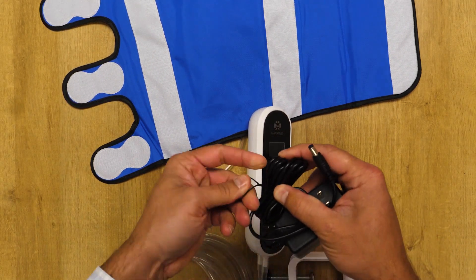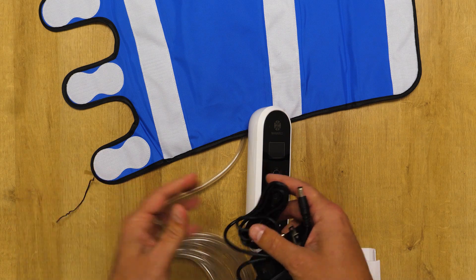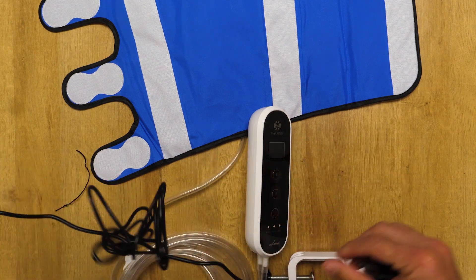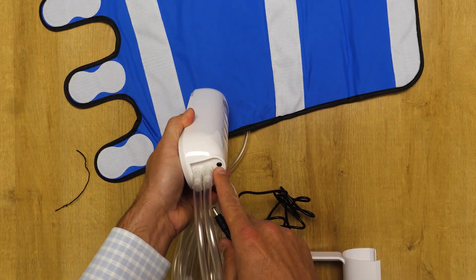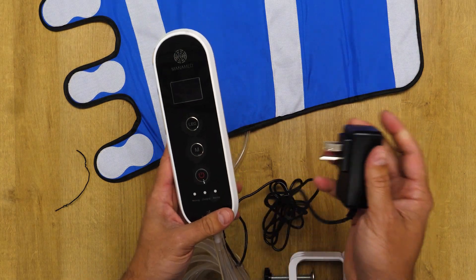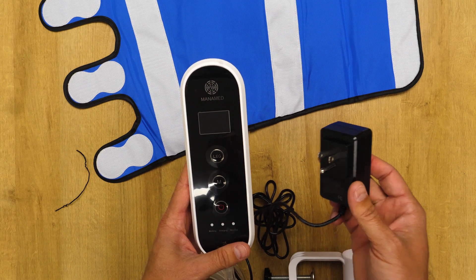Now we want to discuss mounting the product to the end of a bed rack. Some surgery centers may choose to charge the unit at night or while it's being used during the case. To charge the unit, there is a female port right here and you would insert the charger into the unit and plug it into the hospital bed or in SPD where they're charging these devices for the next day.